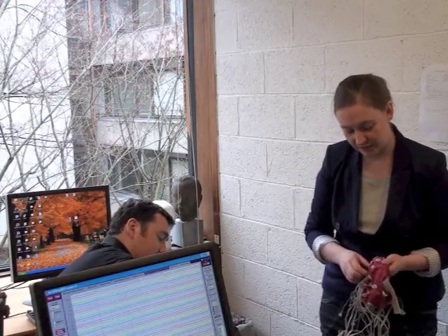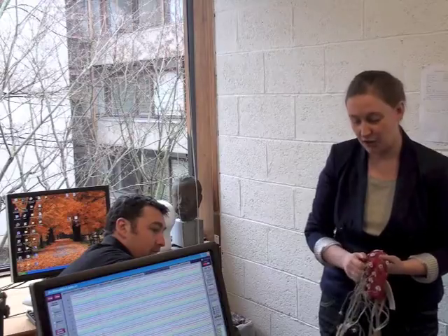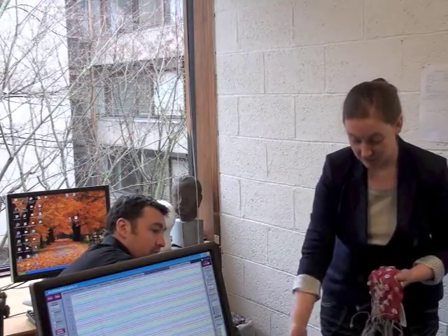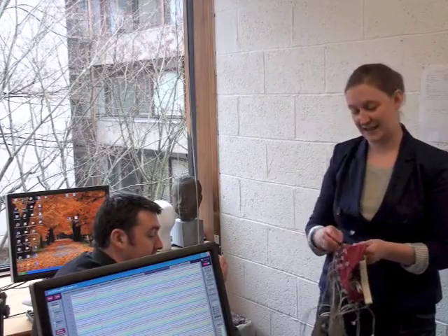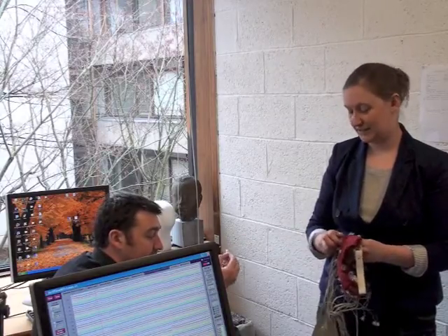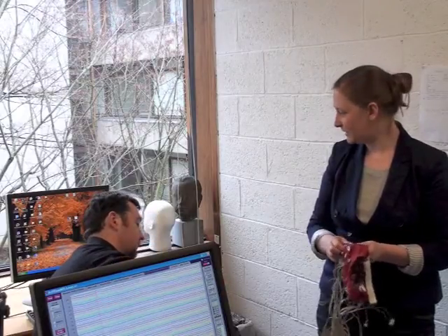The cleaning part is boring and takes a lot of time. Once you have that done, you just unplug everything, roll it up and put it back in the box. It's very easy. If the battery has been low in charge, make sure you leave that one charging. There's a set to charge it over there, and use the other one next time. And just on cleaning these, remember to take off the double-sided things. It's invisible once the paper is gone.